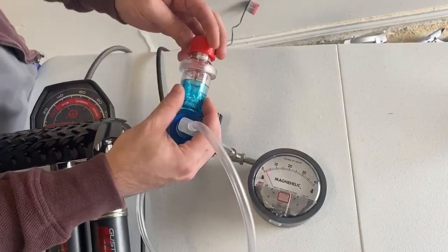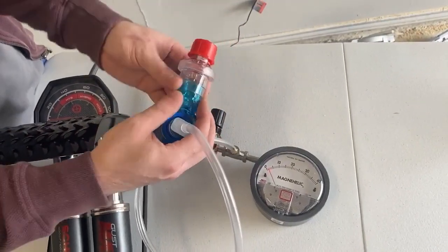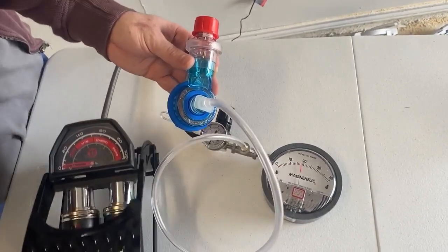If I adjust this to 20, now it goes up to 20.